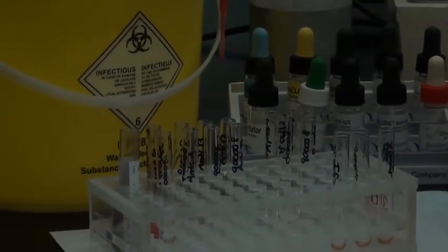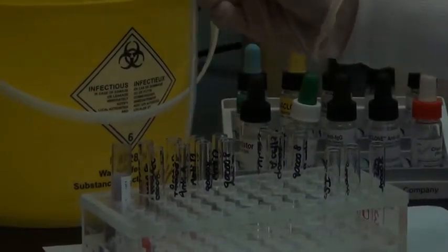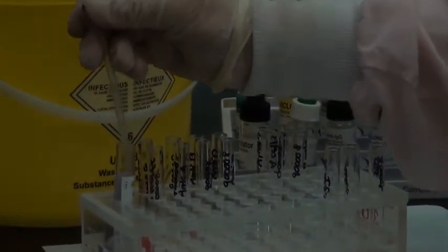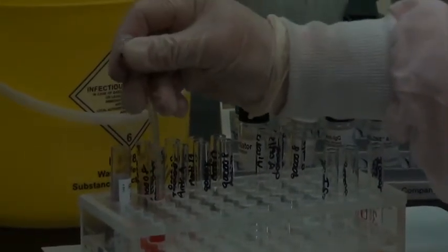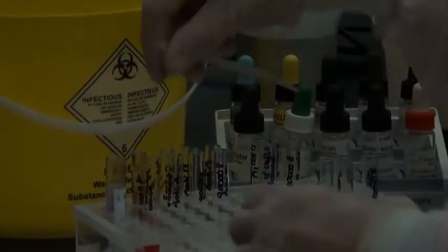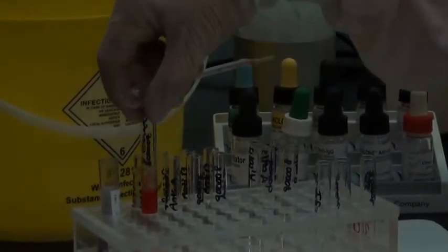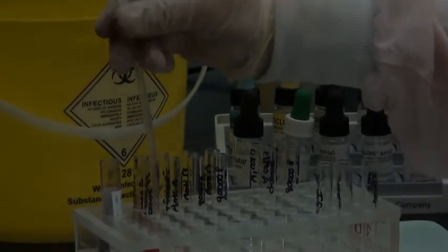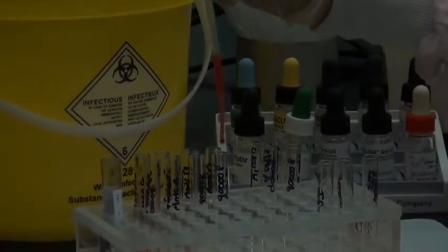Okay, discard that pipette, grab another pipette, grab some cells from the bottom of the EDTA, and make your second 5%. I like the look of it. I think it's about 5%. Again, make adjustments before you pipette. And pipette out your forward group, your second forward group.